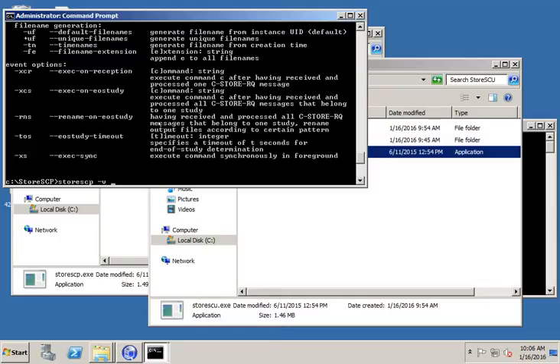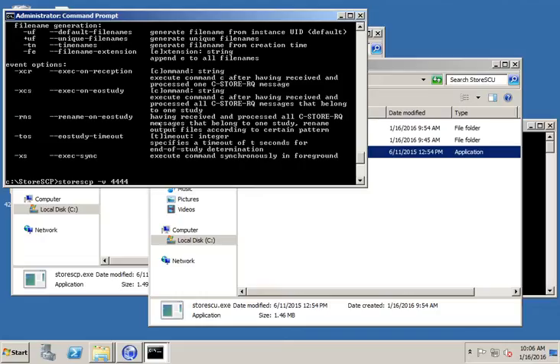Then you have to pass it a port number. This is the port number that it's going to listen on. I know I have no DICOM devices on here listening on port 4444, so I'm going to use 4444. You want to make sure you use a port that you're not already using for something else. So if you already have a DICOM listener on here, maybe you're testing this from your PACS system to see if you have DICOM connectivity or you can send some DICOM files to it, don't set it to listen on the same port as whatever's already turned on. Otherwise, it's going to conflict.